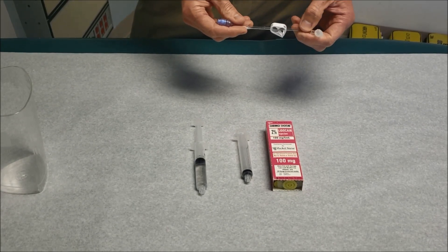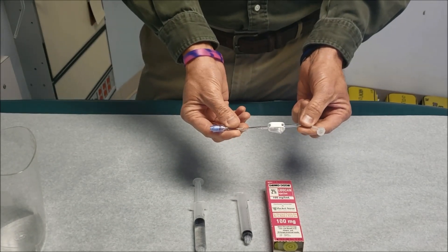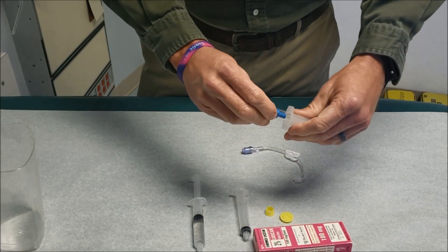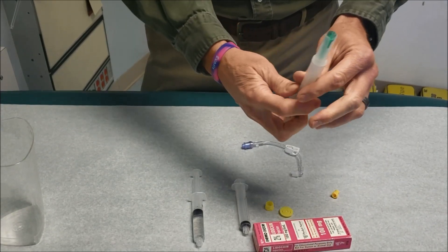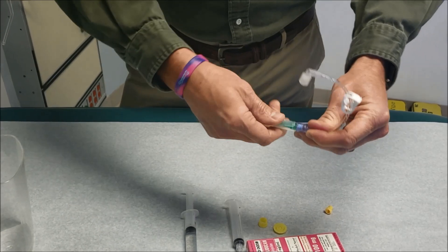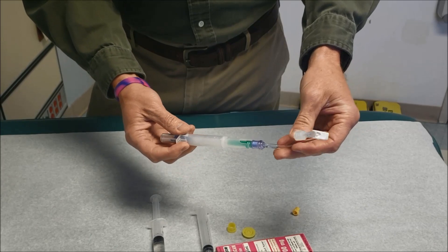When we administer lidocaine to a conscious patient feeling pain via the EZIO quick connect catheter, remember that this catheter contains 1 cc, which equals 20 milligrams of lidocaine. So as we pre-fill this syringe prior to insertion of the EZIO needle, it connects as such, then comes apart. Flush out the air, hook the catheter up to your lidocaine syringe, and you pre-flush this with 1 cc of lidocaine, which is 20 milligrams of medication.